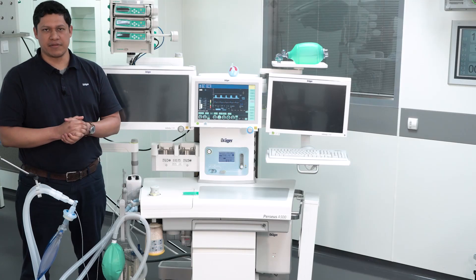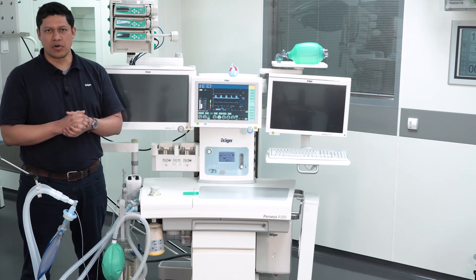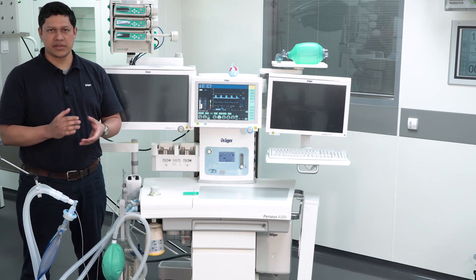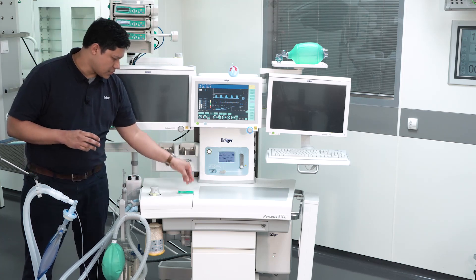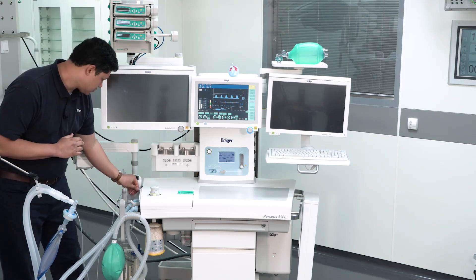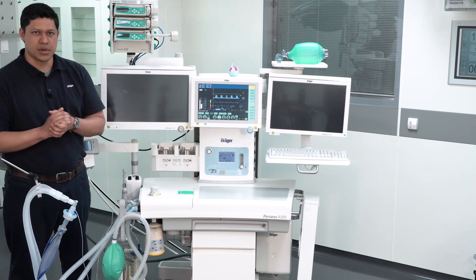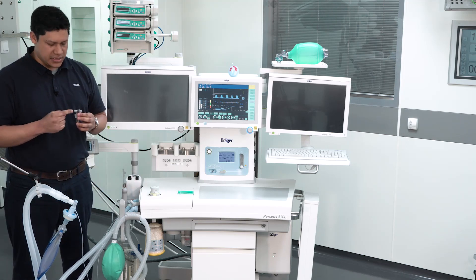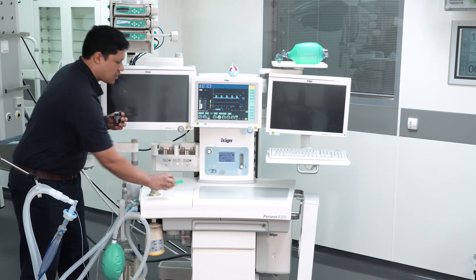Another important element to verify is the gas measurement water trap. Make sure that no more than 50% of its capacity is filled with water. To drain the water trap, you will need a regular syringe. First detach the sample line and take the water trap out. Then place the syringe in the lower port, the colored one, and drain it.